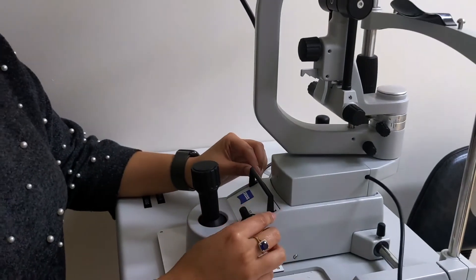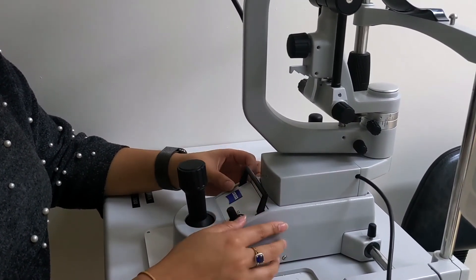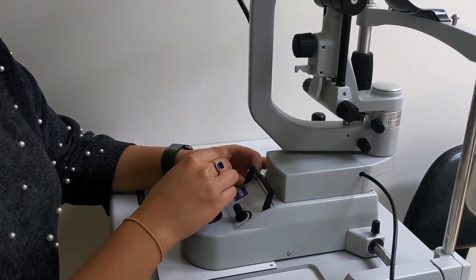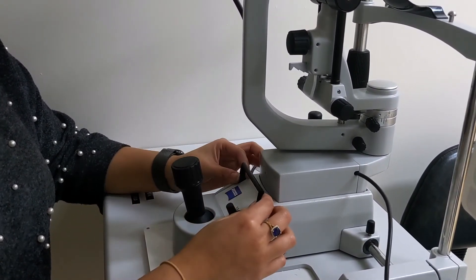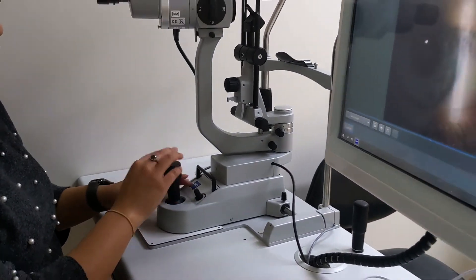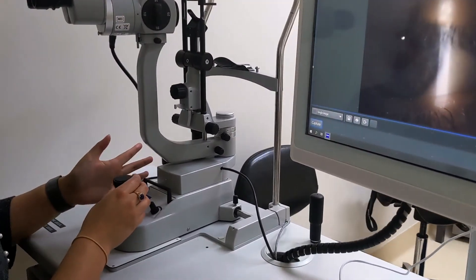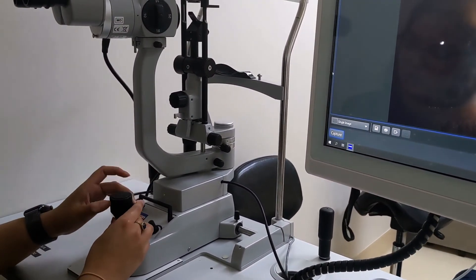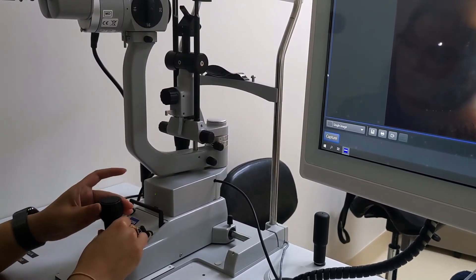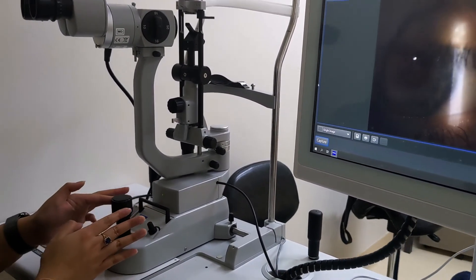The next issue is the brake — if it's flicked forward, the machine won't move or will have a lot of resistance. Make sure the brake is flicked back. Also, to move the slit lamp up and down with the joystick, use clockwise movements to move it up and anti-clockwise movements to move it down.